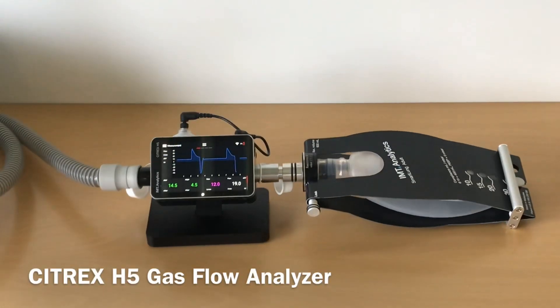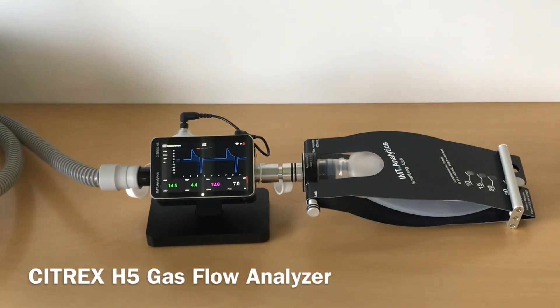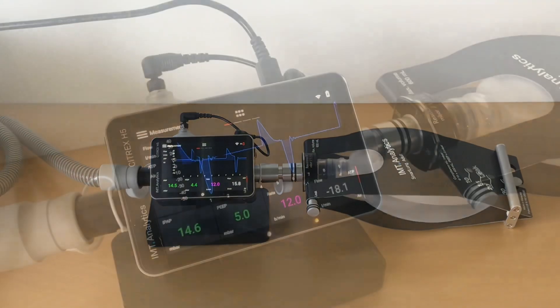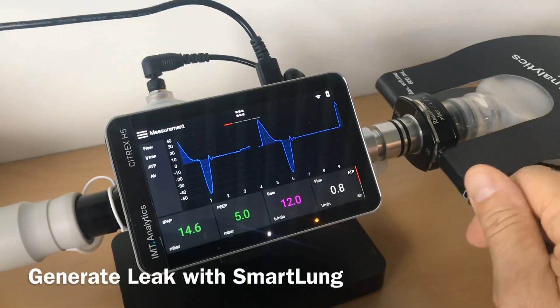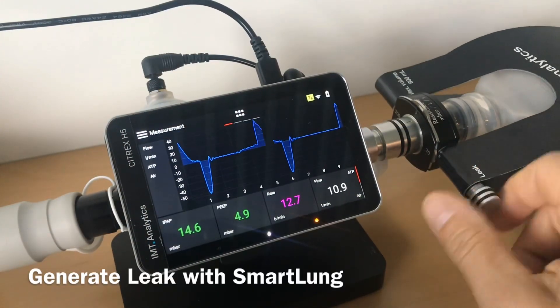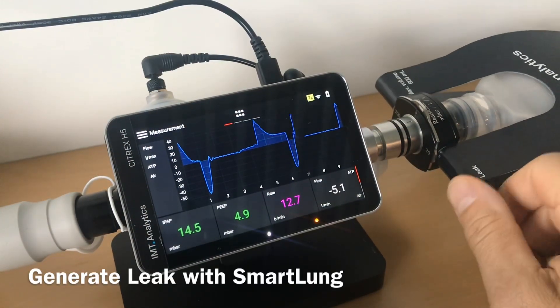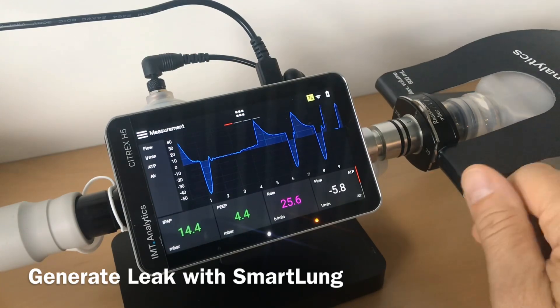After connecting the Citrex H5 gas flow analyzer to the ventilator on one side, I have connected a smart lung on the other side. Then I generated a leak on the smart lung.